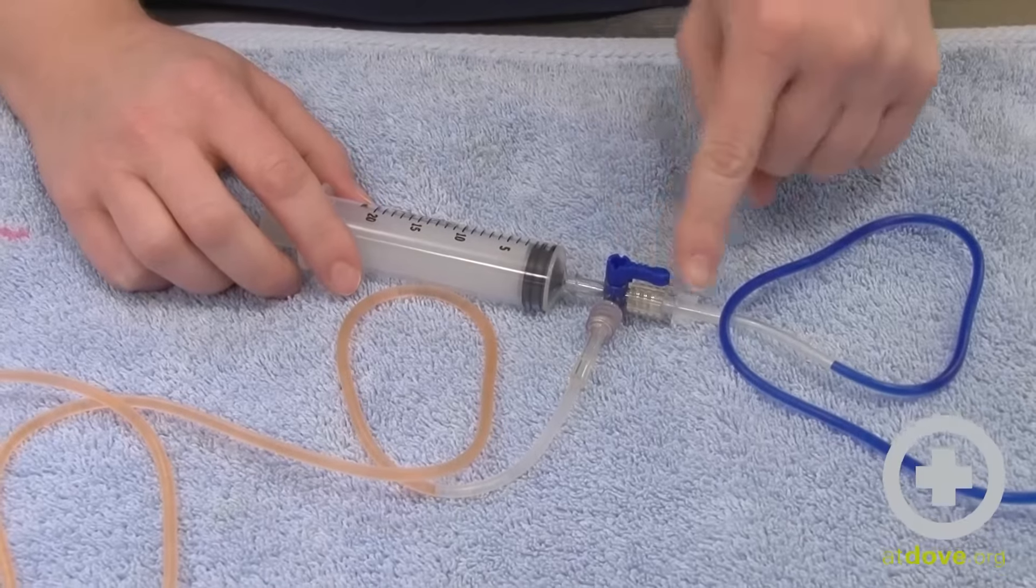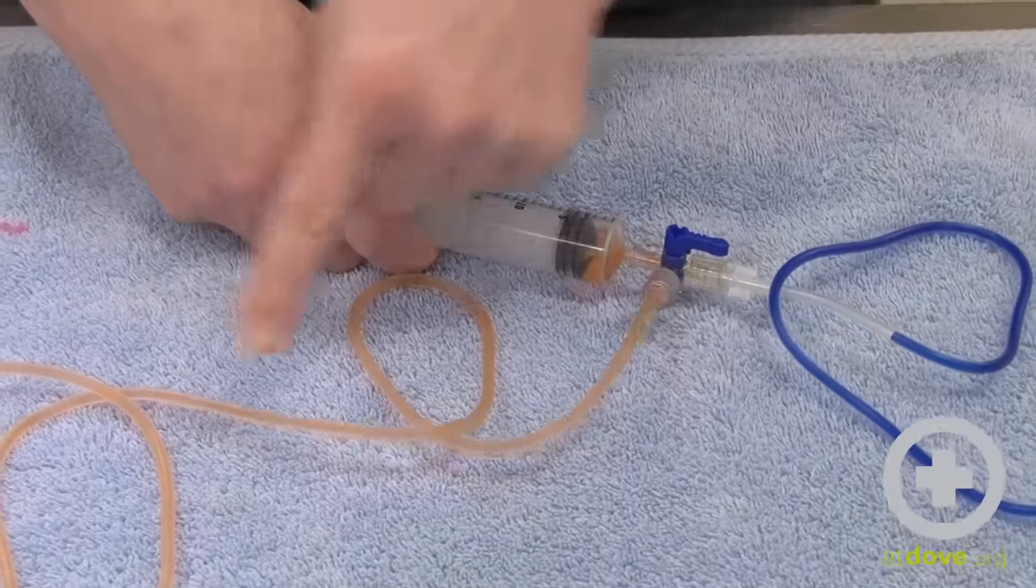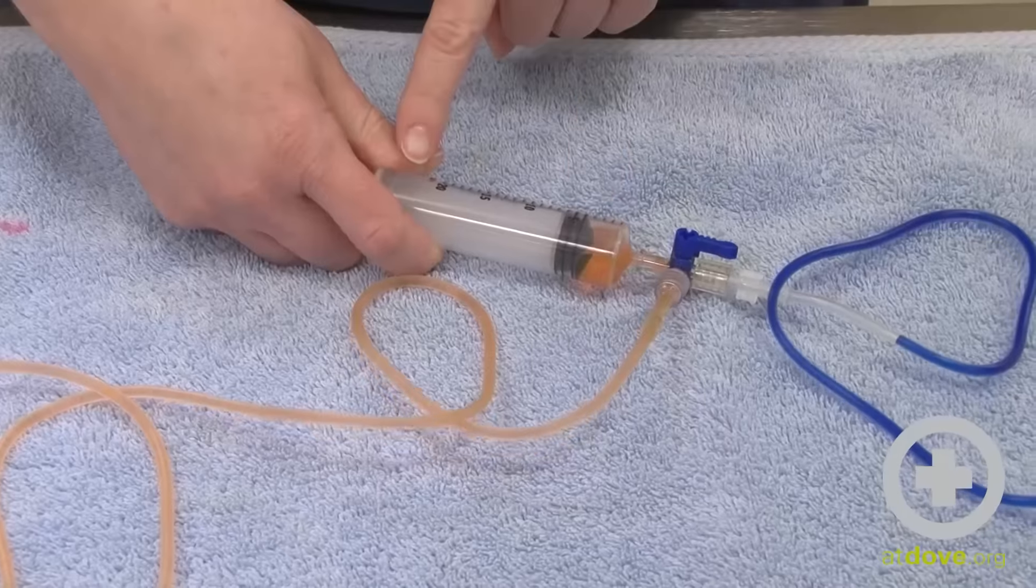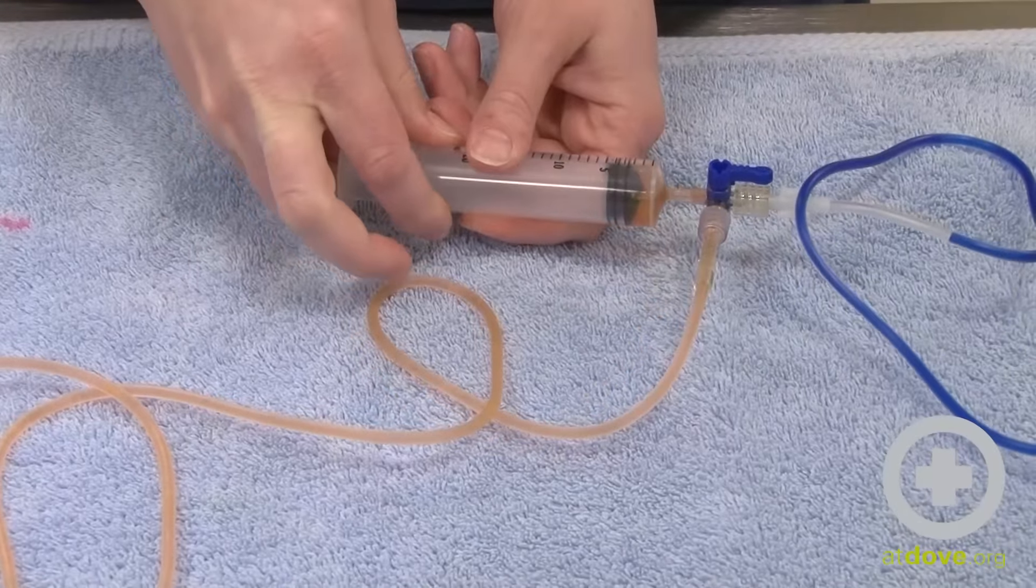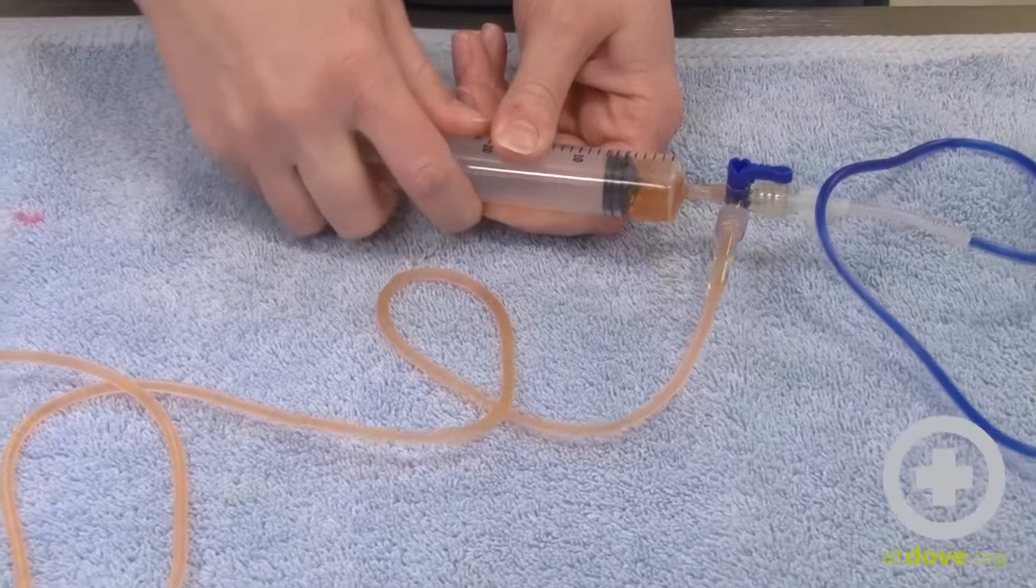So right now we are closed off to the blue line, so if I draw back I'm drawing from the red because this is the open port. I can also push back on the red side.